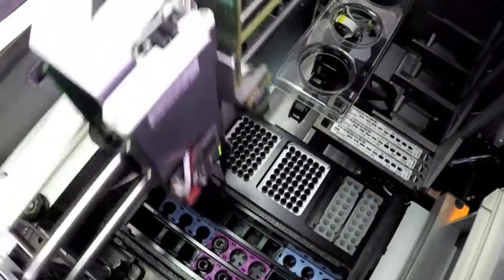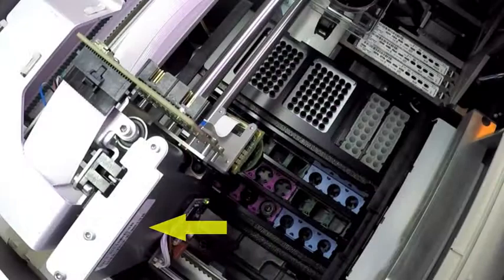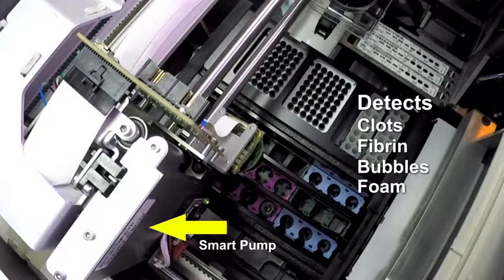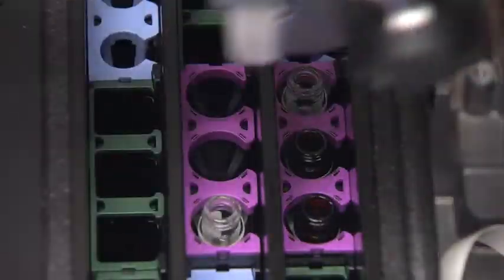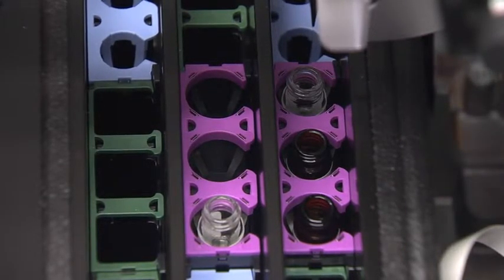The pipetter collects the tip from the disposable rack. It then aspirates the sample from the sample tube. While aspirating, the smart pump measures the resistance to detect the presence of clots, fibrin, bubbles, and foam that can compromise the quality of results. This is also done during measurement to ensure the whole process, from sampling to result, is conducted using an uncompromised sample.